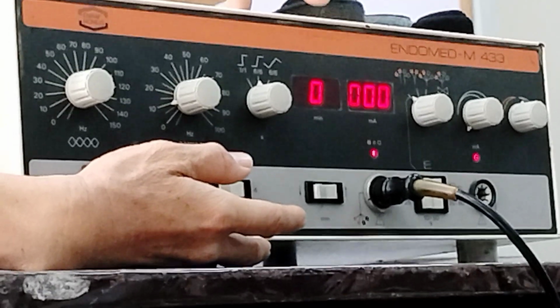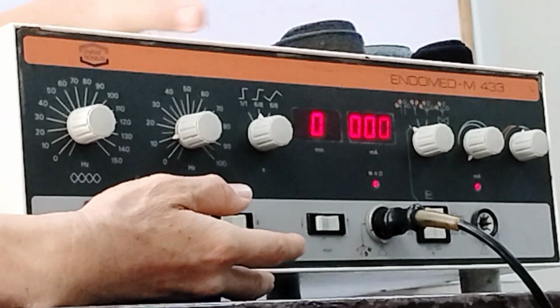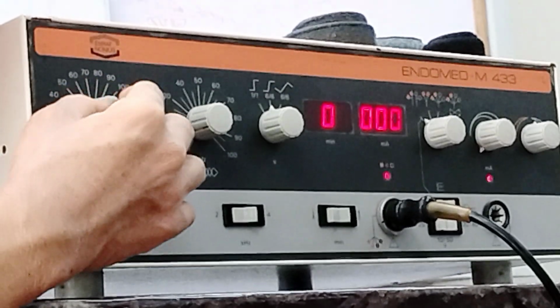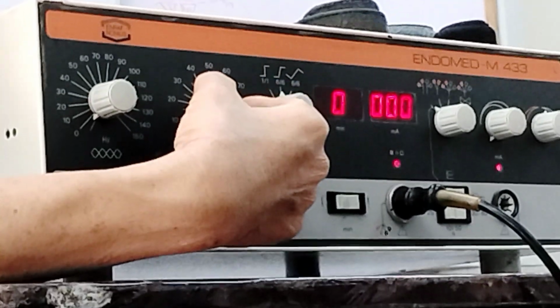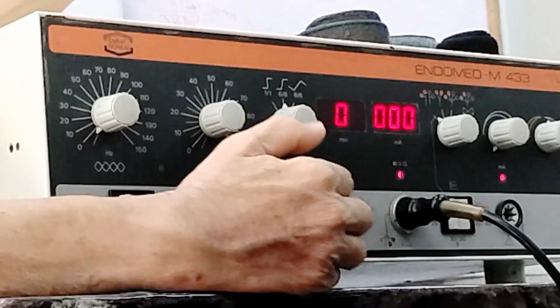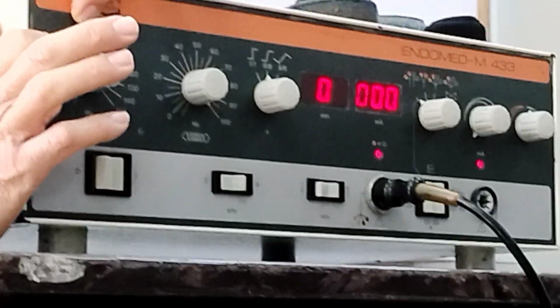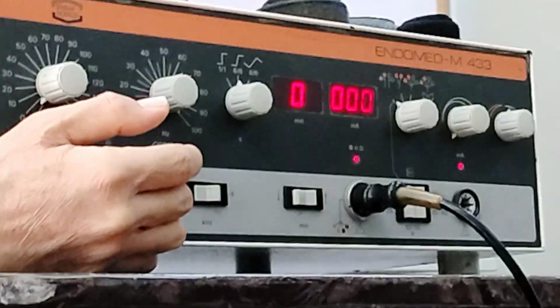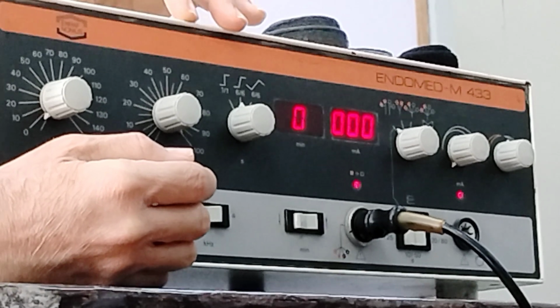If ever, let's say, you have 1 to 100 Hz rhythmic, whenever it's rhythmic, the rhythm changes. So how would you adjust that for 1 to 100? You place this to 1, your base or starting frequency, and your shift frequency or spectrum frequency would be 99. Okay, so it starts at 1 Hz, then goes up to 100 Hz. So you have 1 to 100 Hz rhythmic.